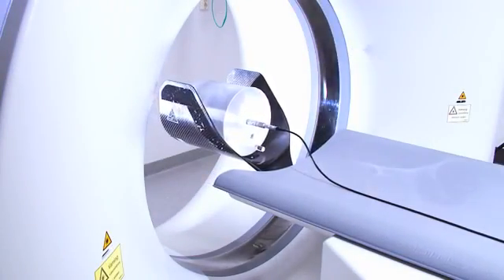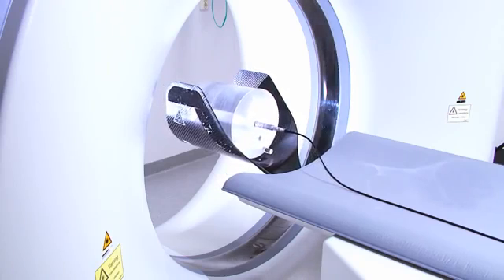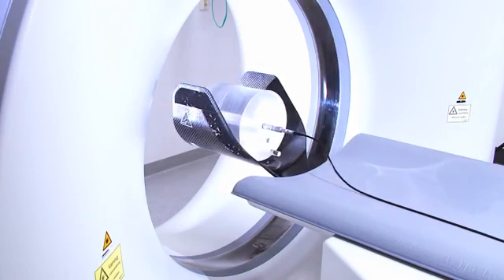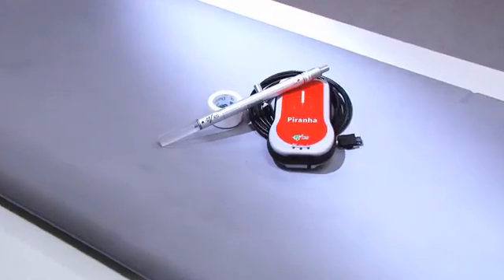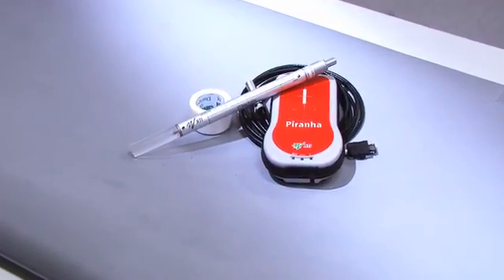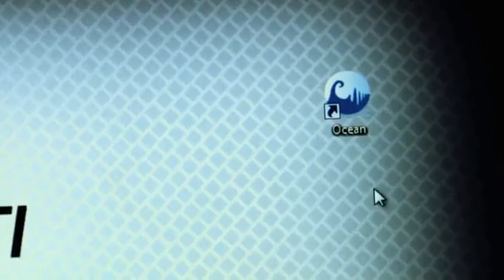This film will guide you through how to carry out a measurement in a CT dose index phantom and free in-air in a CT, using the CT dose profiler probe, the Piranha and the Ocean software.